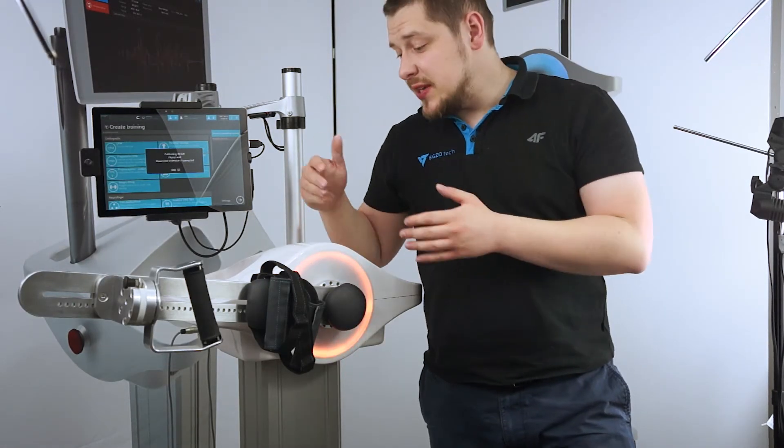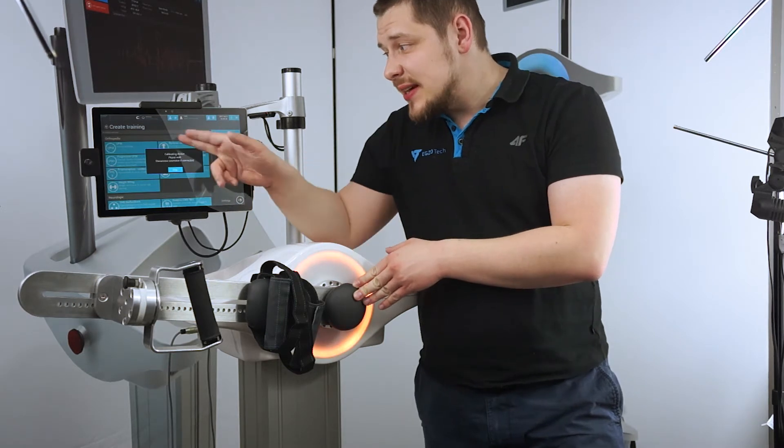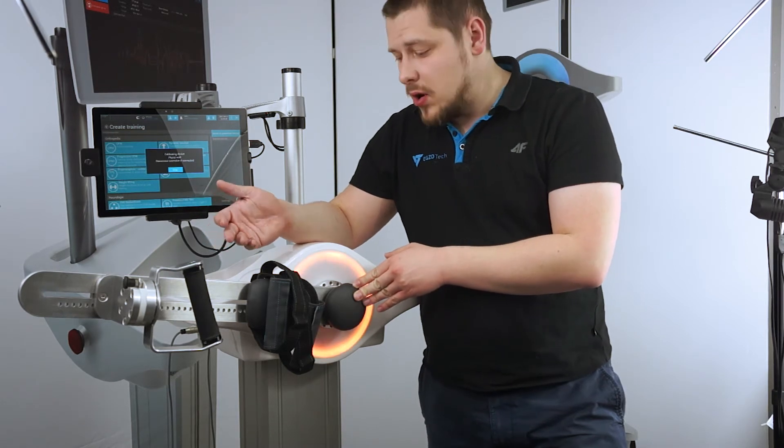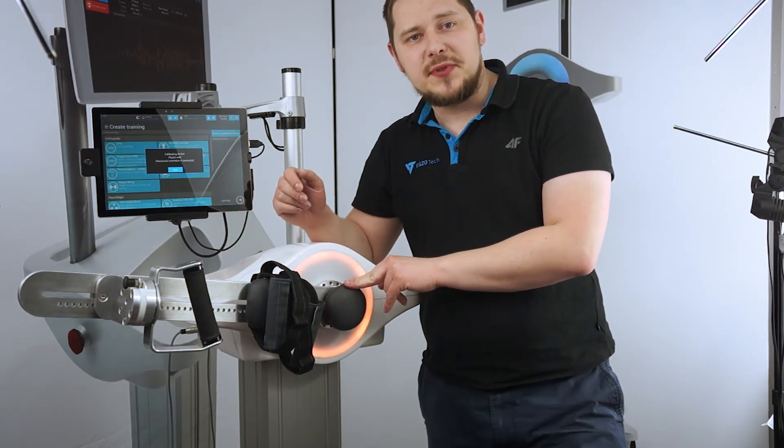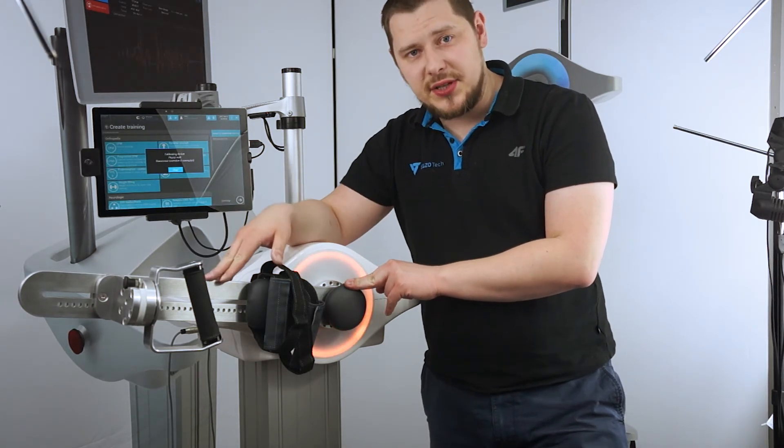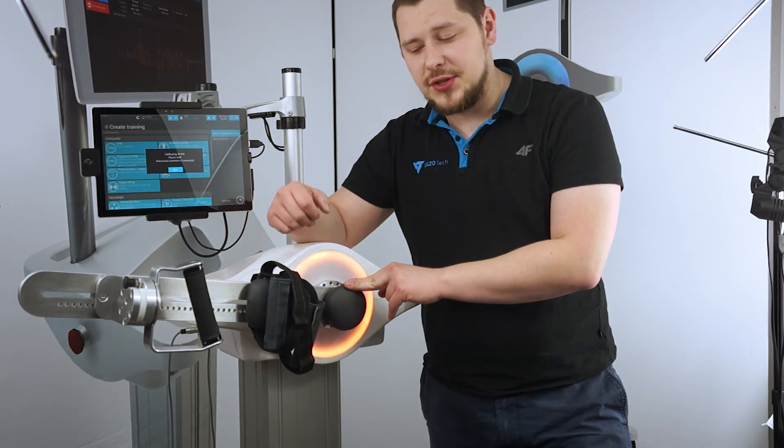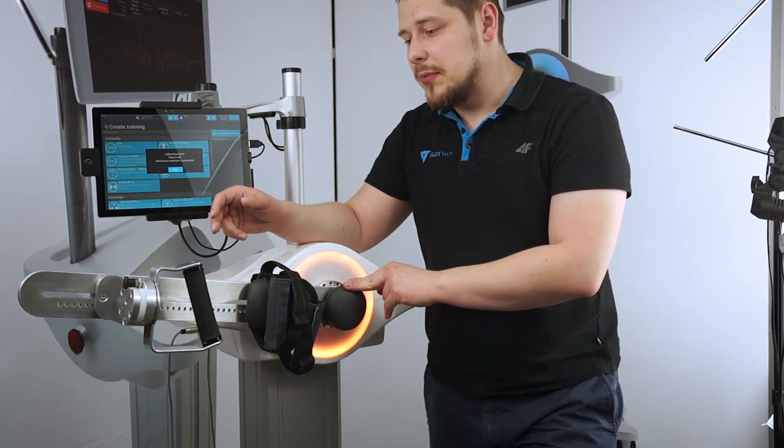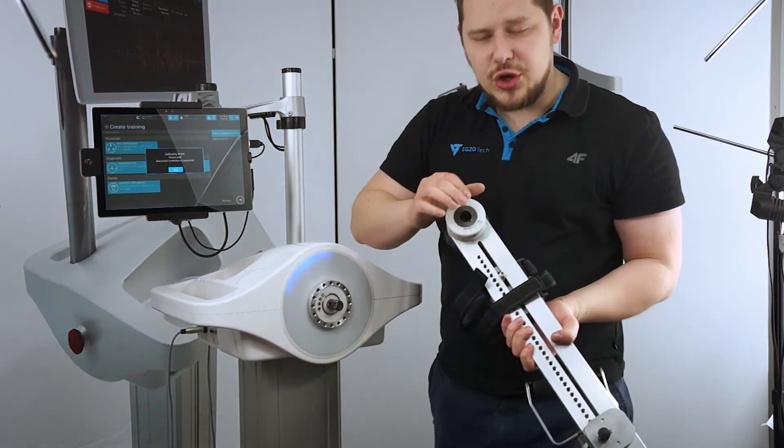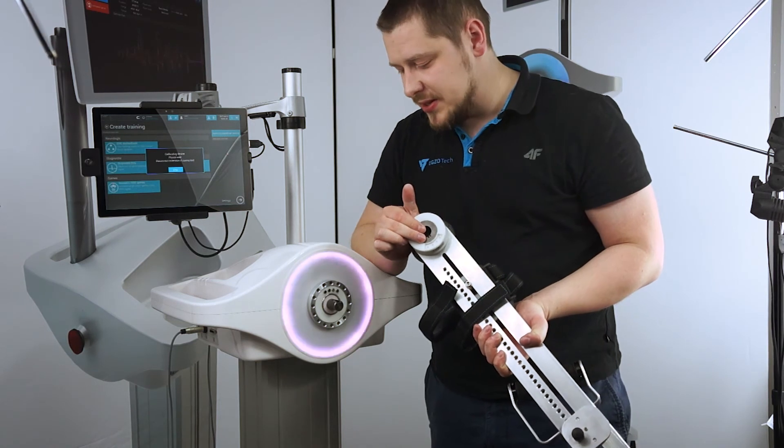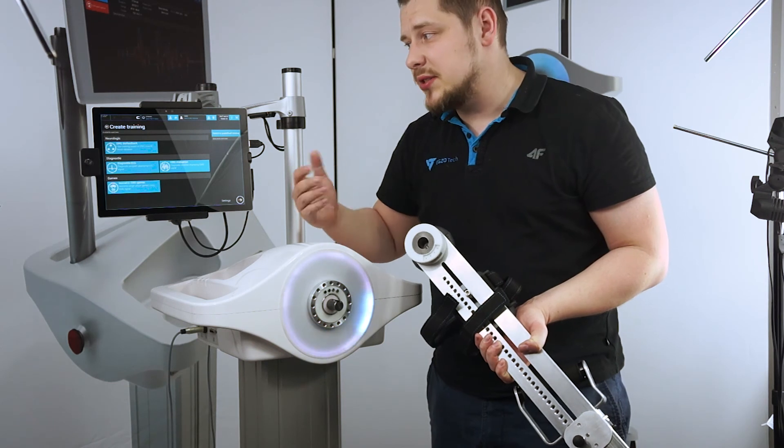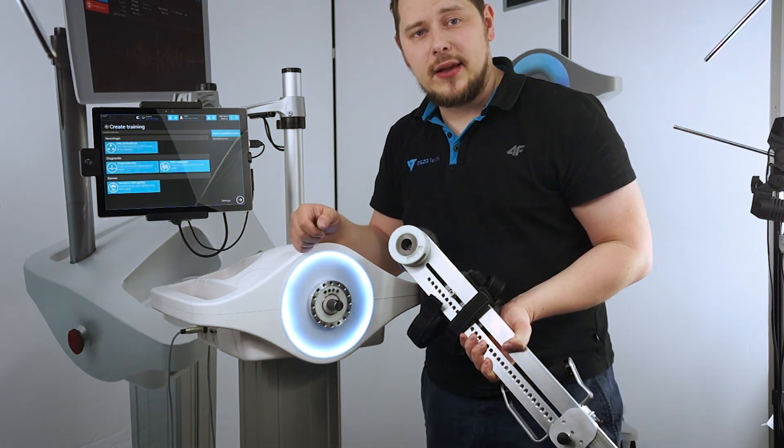If however you've just put the extension in and you still get the notice that it's calibrating the device, and you didn't do anything wrong and the extension is in the upright position, that may mean that it's unable to communicate with the extension itself. It means it's not able to detect the extension itself. To solve the problem, disconnect the extension and try cleaning the spring-loaded pins for conductivity. It means that those aren't connected and Luna is not able to detect the extension itself.